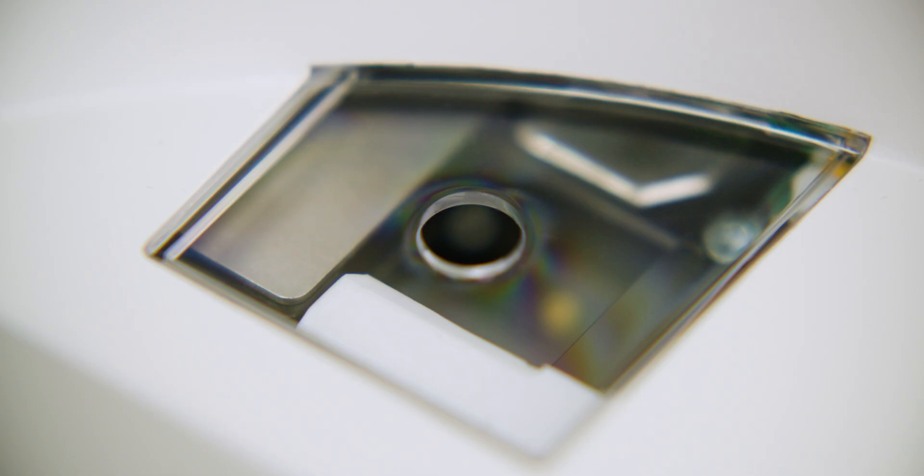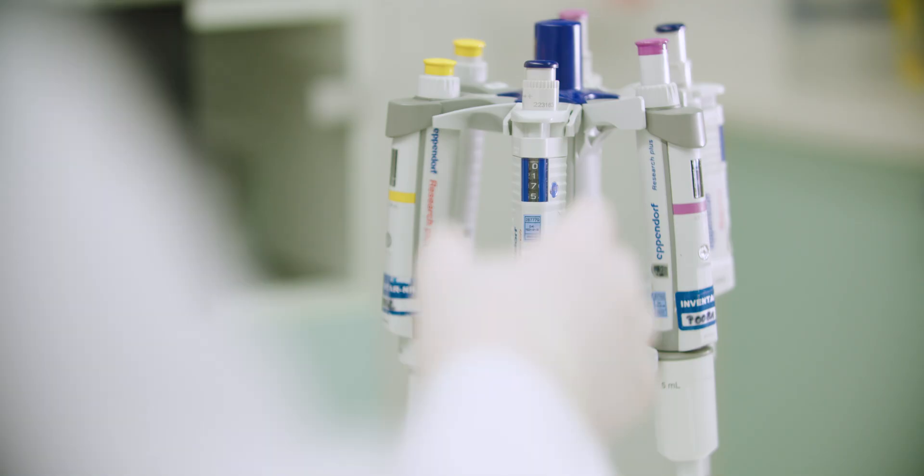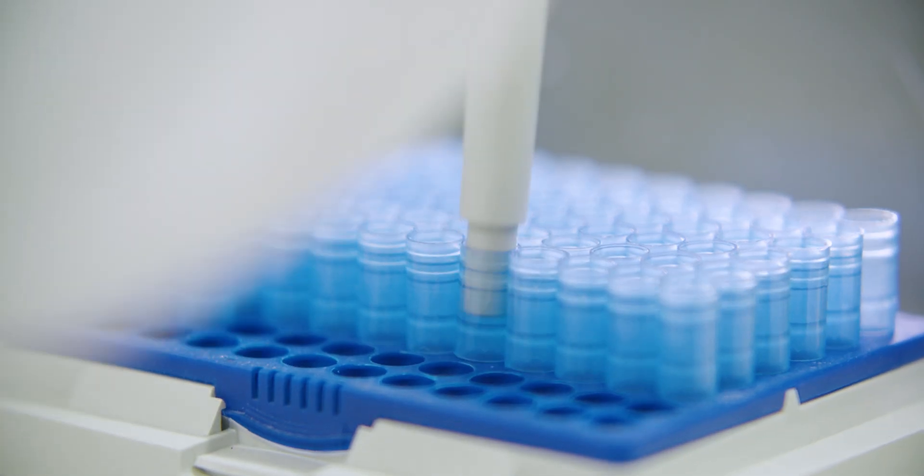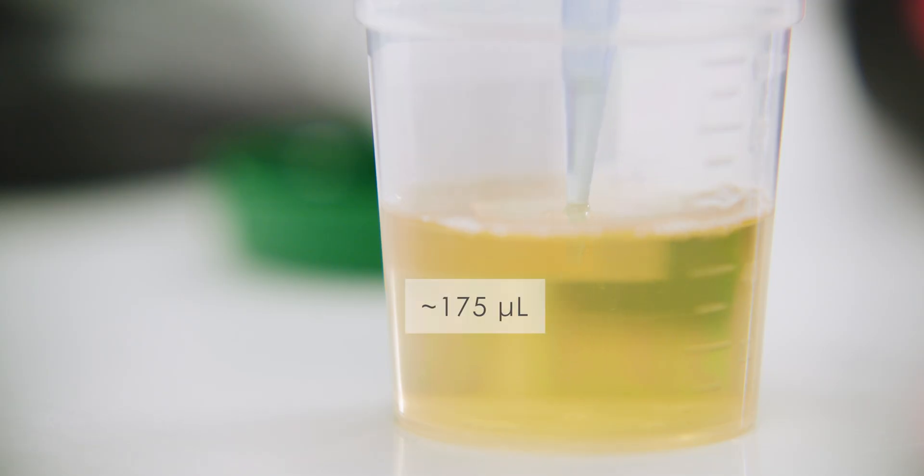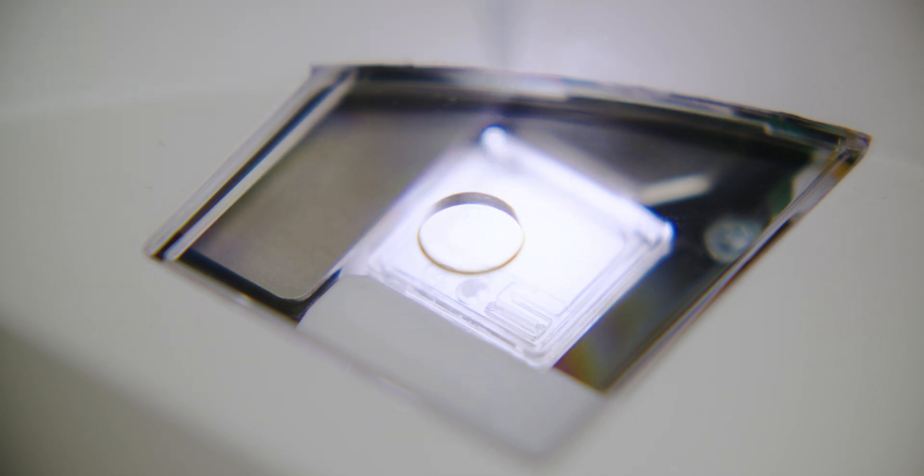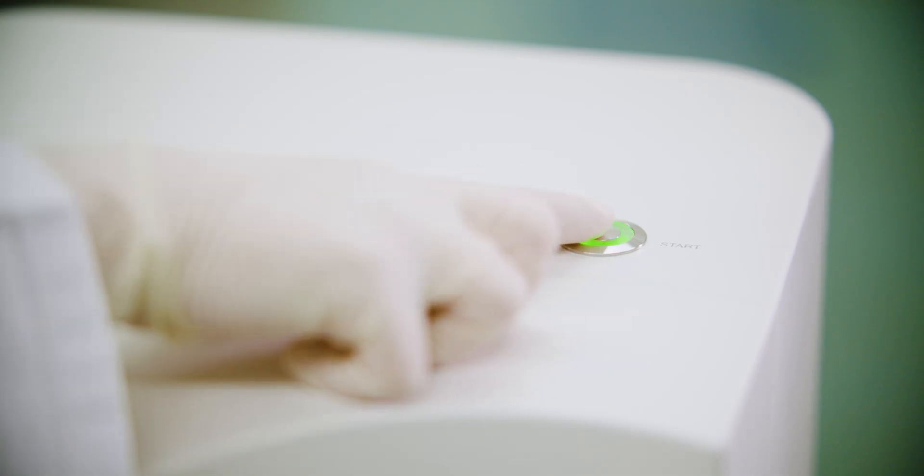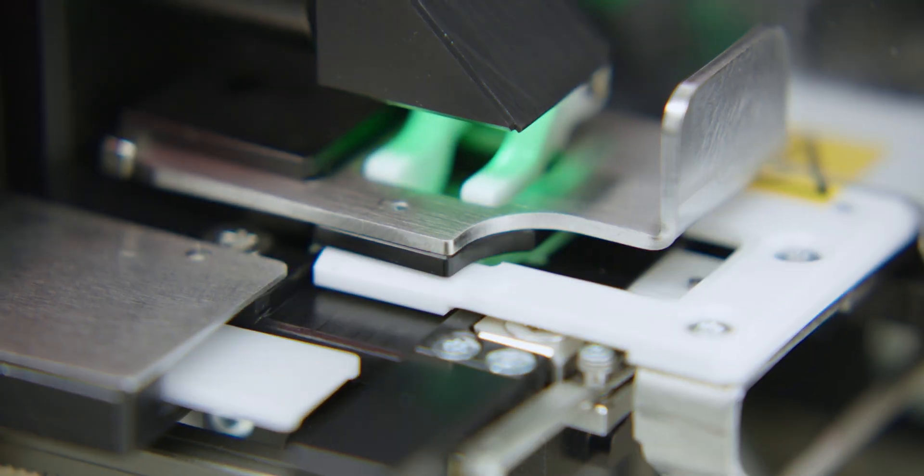Entering patient and sample data by barcode simplifies handling and minimizes transmission errors. The urine sample is pipetted into a cuvette. All further processing steps up to microscopic image evaluation run automatically within 60 seconds.